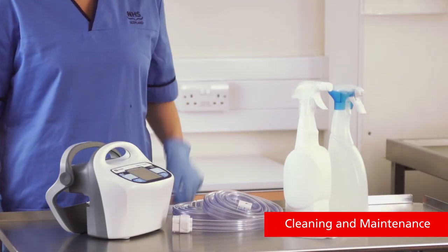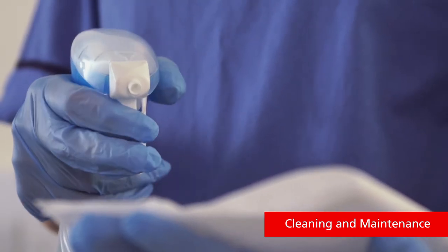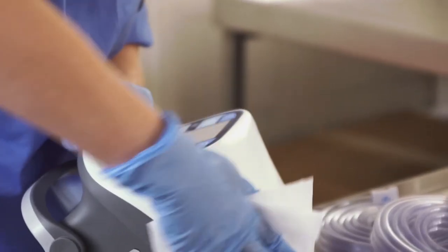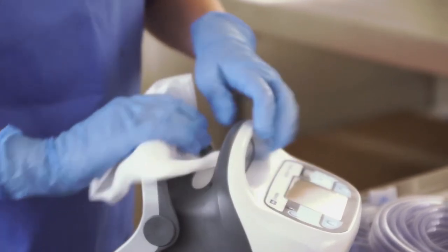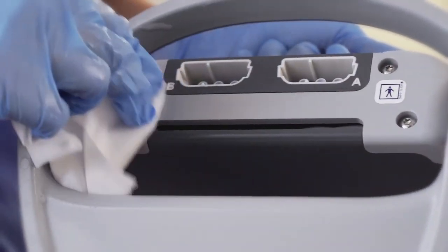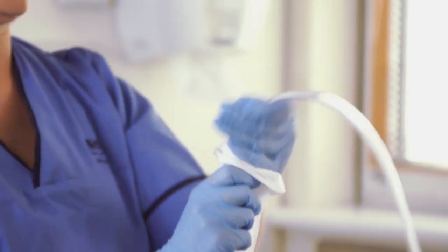The Kendall SCD 700 series controller can be cleaned with a soft cloth dampened with water or a mild detergent. To sanitize the device, apply cleaning agents with a cloth or wipe, avoiding excessive spraying especially in the areas of the connection ports on the back of the device. The tube sets can also be cleaned with a soft cloth dampened with water or a mild detergent.